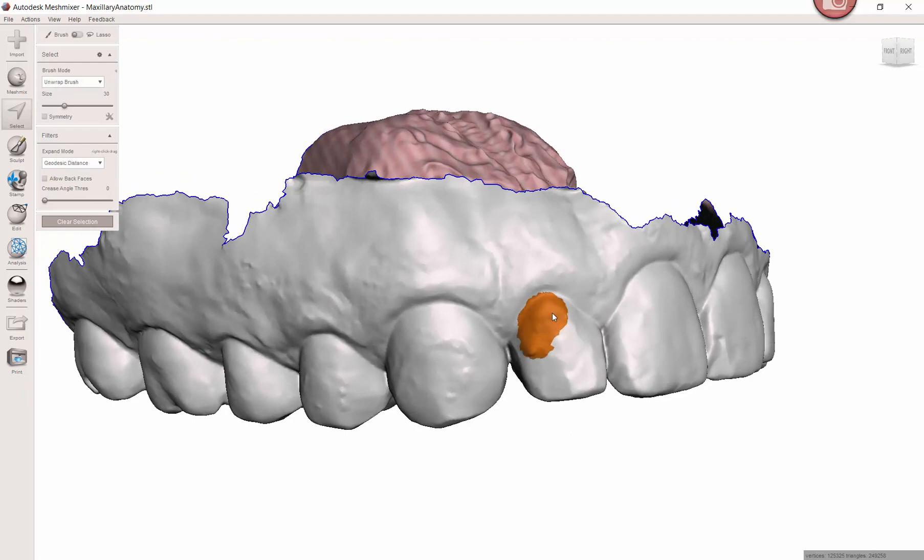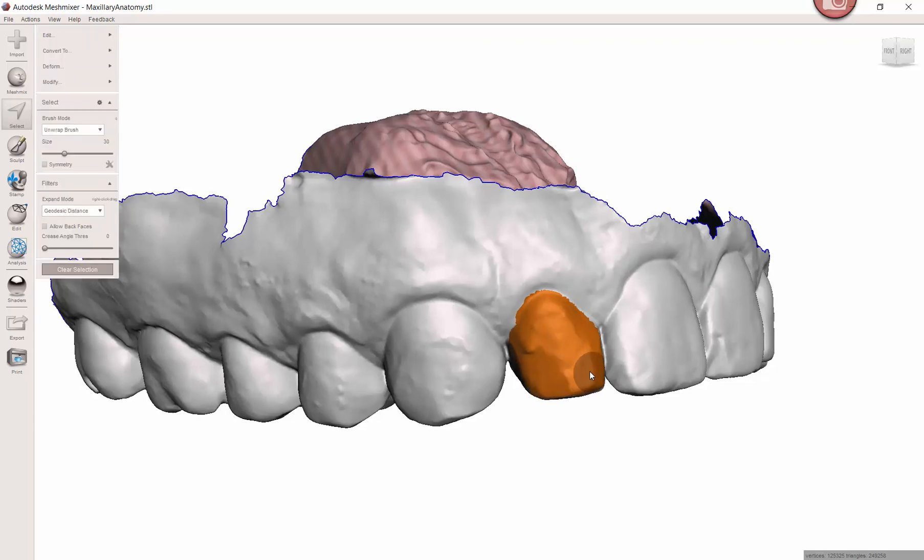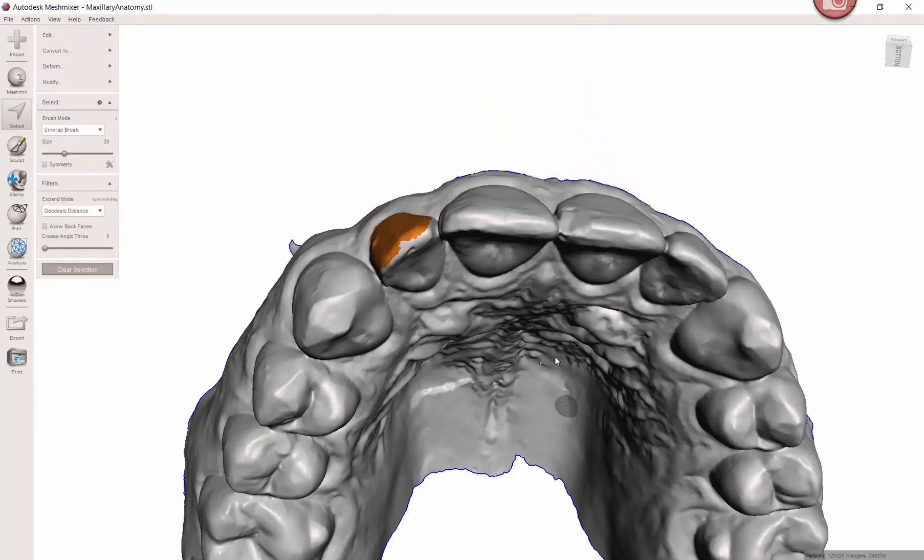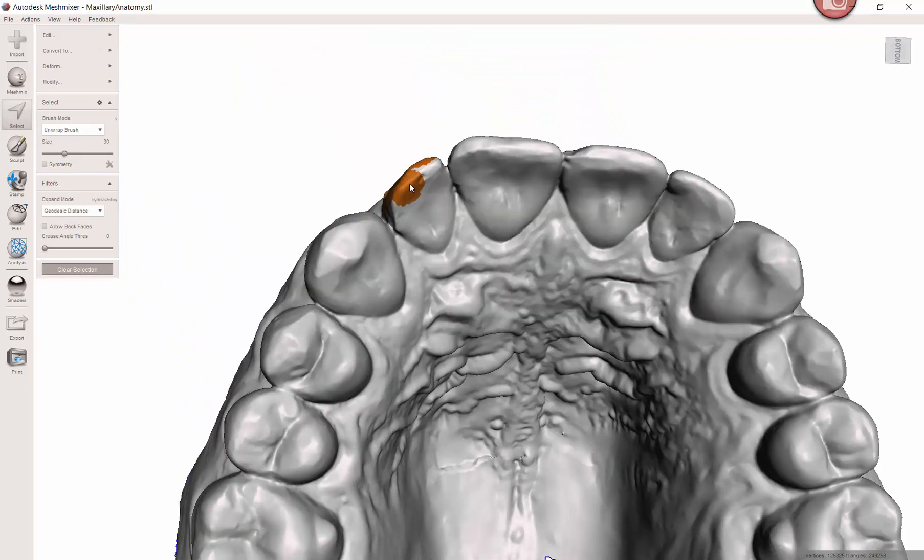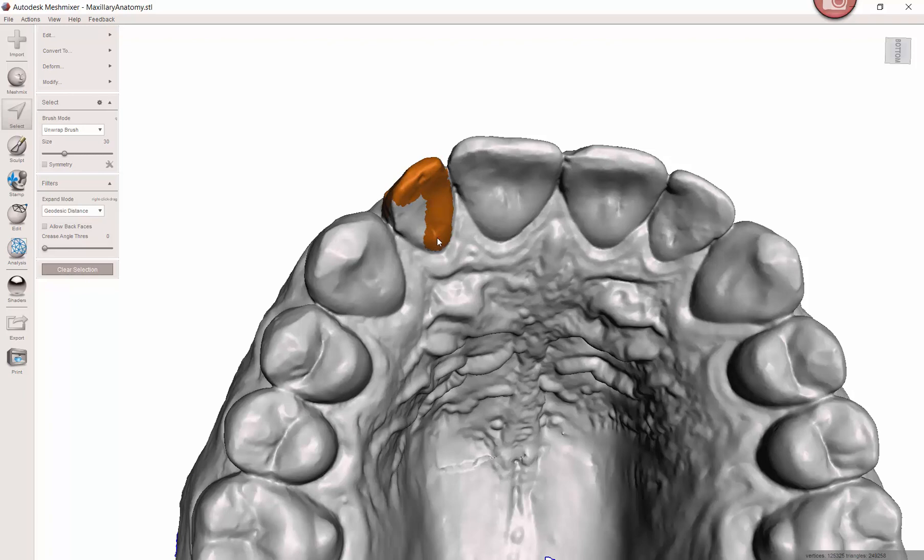Depending on what you're doing, you may or may not need to be real perfect. If you're extracting a tooth to print the model to make a pontic space, or doing this for an implant plan and you want the guide tube to extend down into the edentulous area, which I recommend, these are the times we might do this.